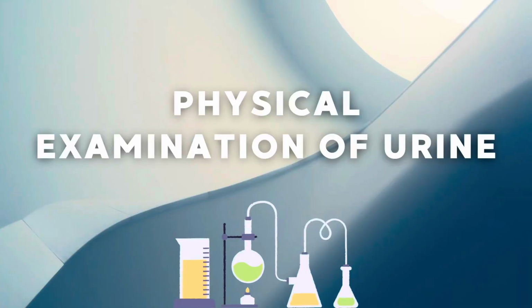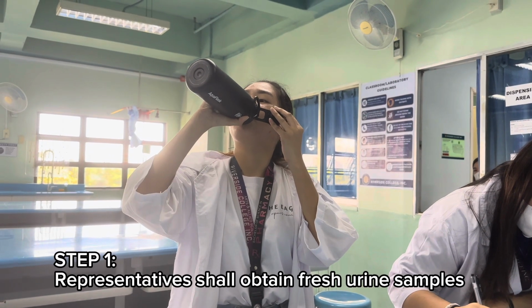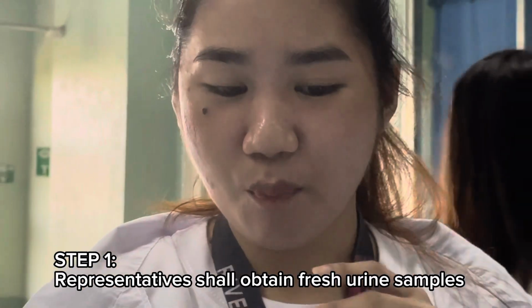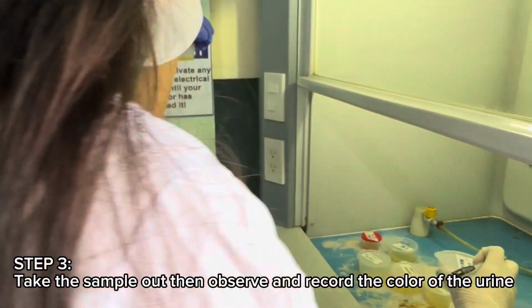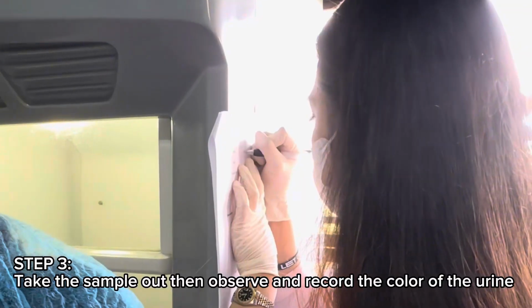Physical examination of urine includes color, odor, transparency, and pH. Step 1. Representatives shall obtain fresh urine samples. Step 2. Label the collected urine samples and put it in the fume hood. Step 3. Take the sample out, then observe and record the color of the urine.